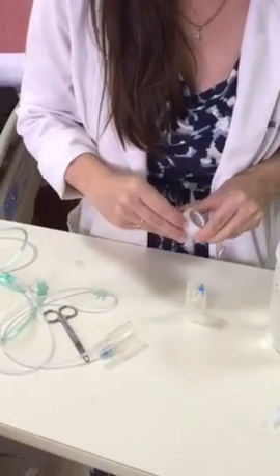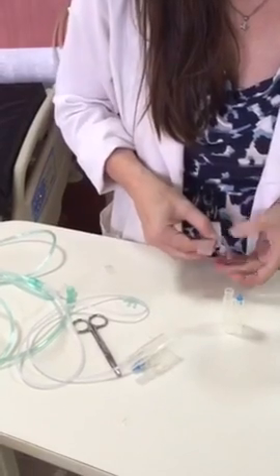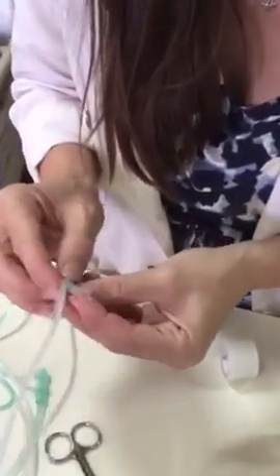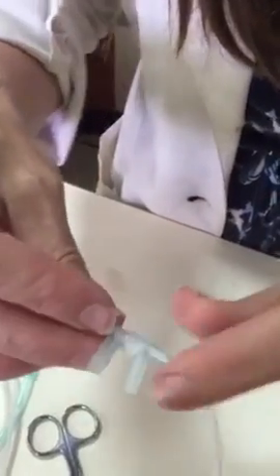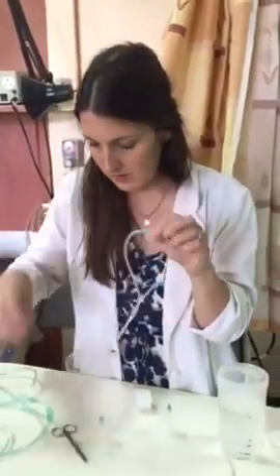Get a thin piece of tape. Obviously, if you've got a coding kid, you want to have this put together beforehand. Wrap the tape around the middle to hold it together. Now this is close enough that the baby's nose will fit — one limb here, this taped together, the other limb is still attached to the wall.